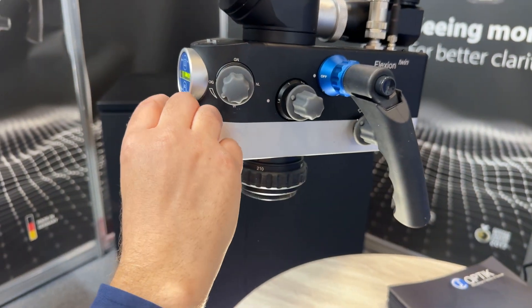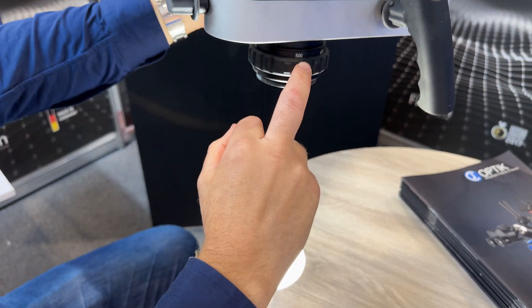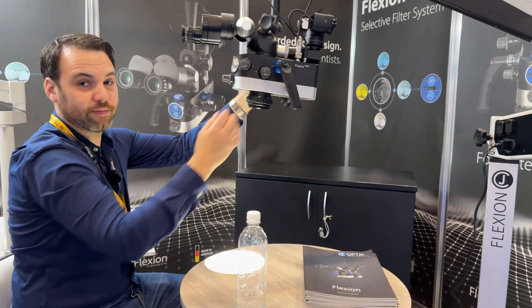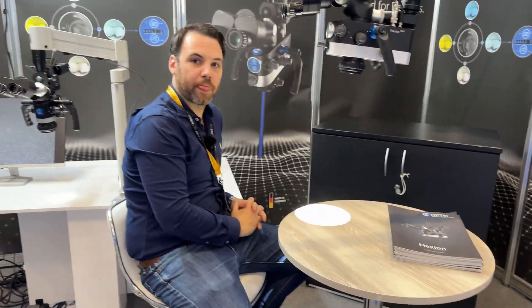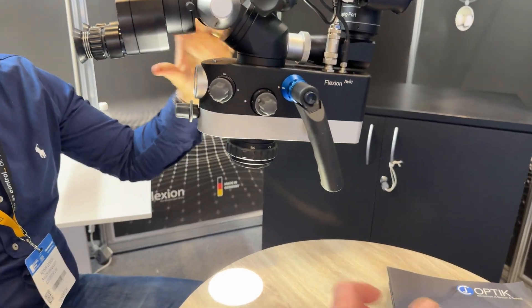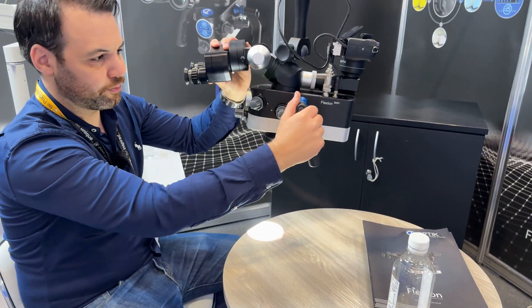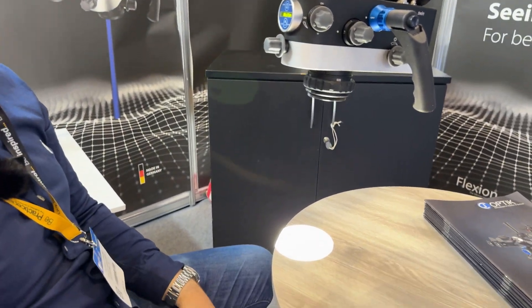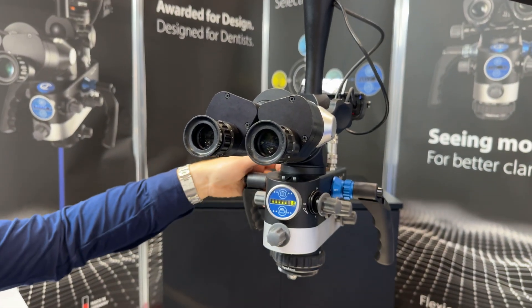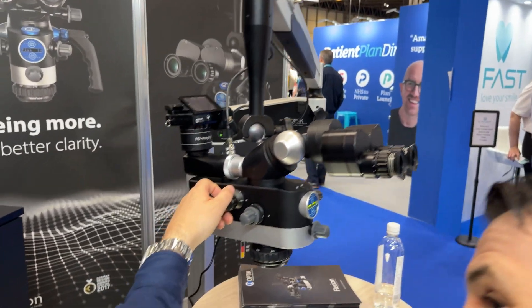On to the vario which we were just speaking about. It's just underneath here, and this has a distance up to 500 millimetres as I said. We can be anywhere really in this range. Coming out to 500 - that's massive, that's huge. On my scope it's probably about here and just to get that kind of depth of field - it's really really useful.